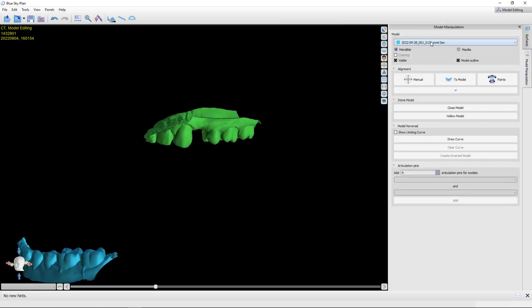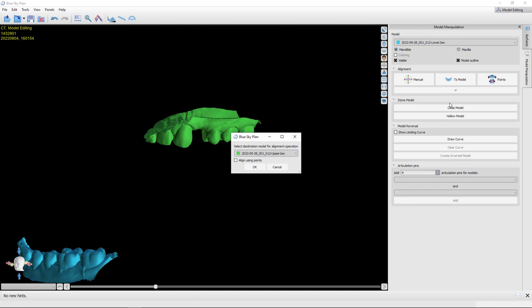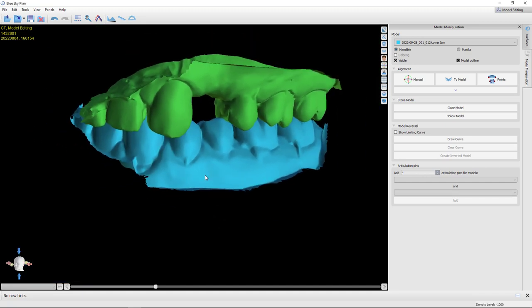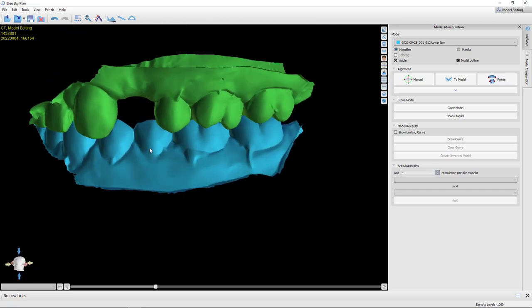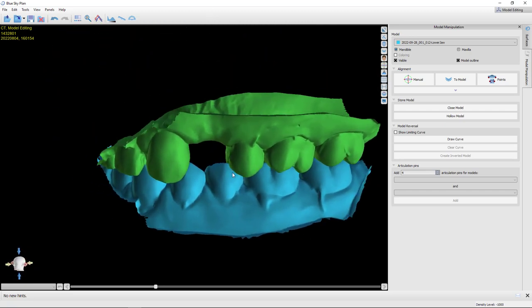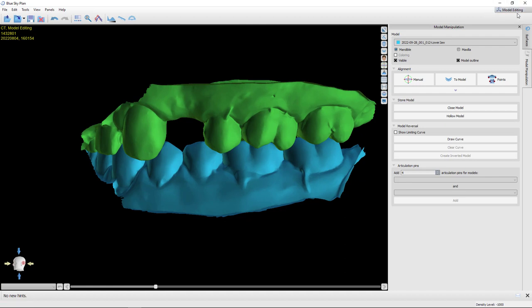And you can actually stitch this to model. So you're going to stitch one model to another. Now I'm going to hide this cone beam data just so you can see this. So back in model manipulation, the blue lower jaw model. I've got mandible clicked. I'm going to say stitch this to a model. Now this is going to ask what destination model. And you want to choose the upper jaw, right? Because when you had these files outside of blue sky plan, they were oriented upper and lower in occlusion. So all it's going to do is apply the same global orientation change to the mandible that was done to the maxilla. And now that brings them back in. So you don't need to check align using points. You want to avoid that. Just click OK. And now we have the original occlusion as it left the scanner. I'm sorry.